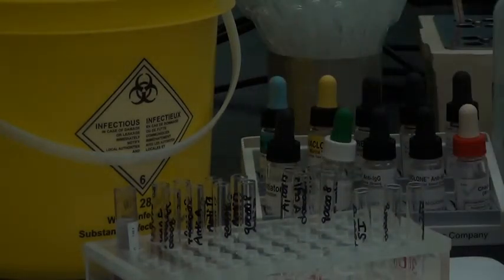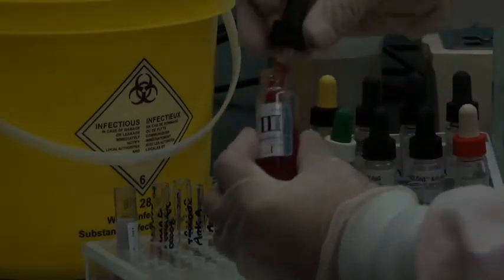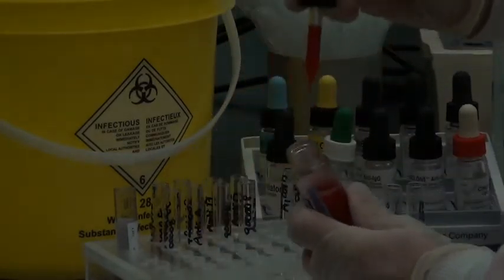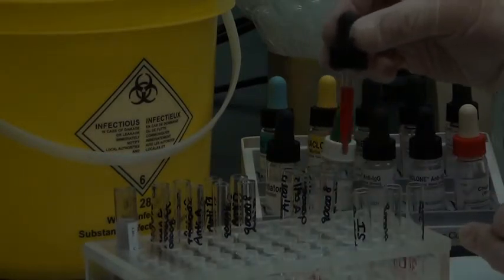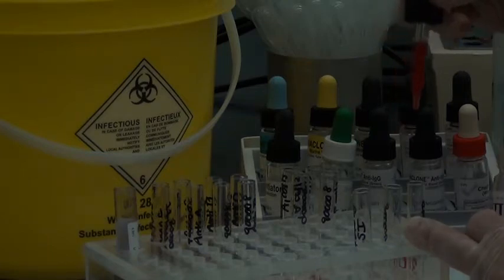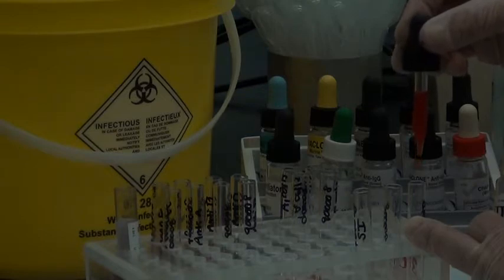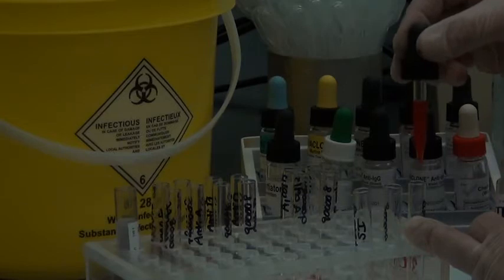You definitely want to get a full-size drop going into each of these screening cell tubes. Okay, we don't want a partial drop, which can sometimes happen due to static. So touch the side of the tube, stand up with your feet on the ground to ground yourself, and drop the drop nicely from above the test tube. Don't go too close. The cell will arc down to the edge and it won't bring a full drop into your test tube.